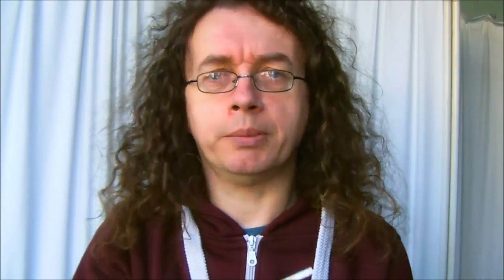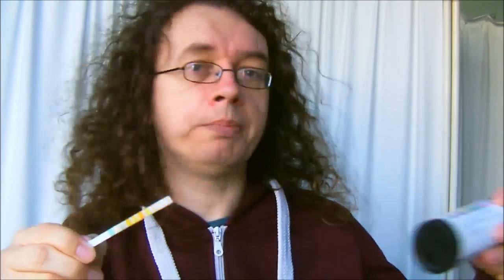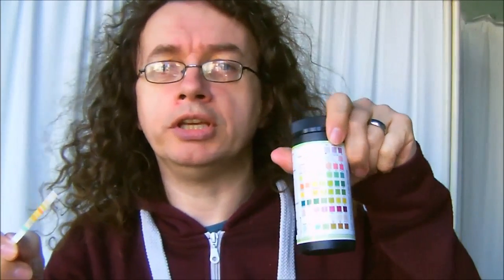I think it's starting to develop now, so what you do is compare it to the reference chart. I'm going to run through the different results and what they mean.